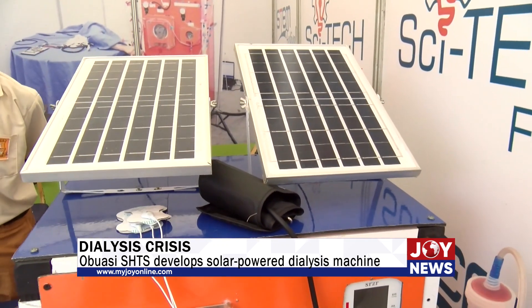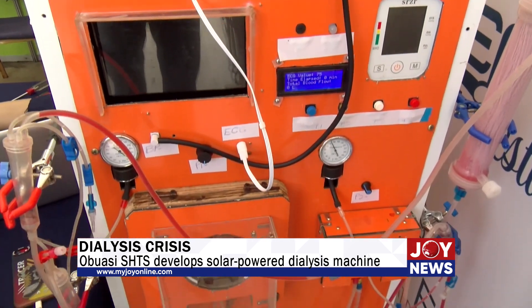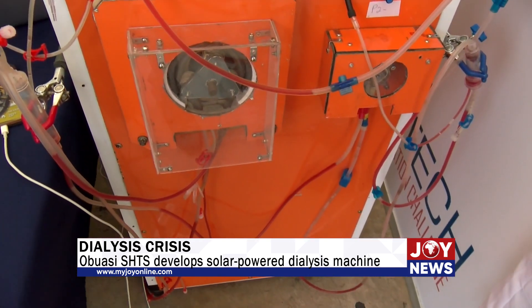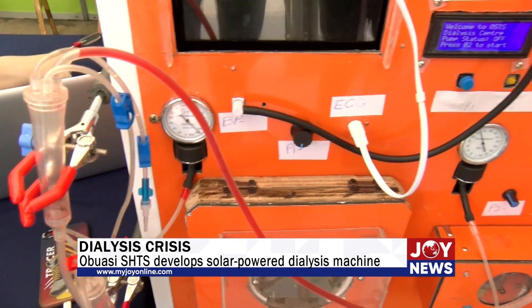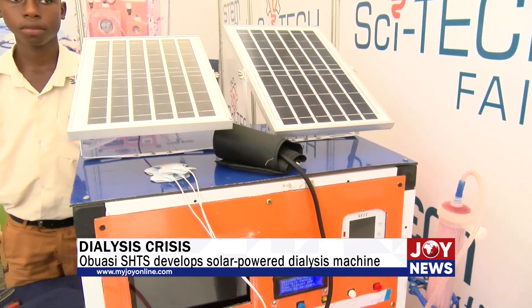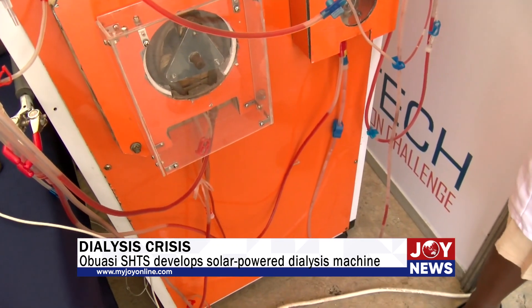What is it about and how did it come about? When a person's kidney gets injured or diseased from an accident or maybe from a disease like nephritis, and the kidney can no longer perform its function like it's supposed to — which is filtering of toxic substances from the body like urea, excess salt, dissolved minerals, and maybe excess water — then the nephrologist will opt for a dialysis treatment to get those substances out of the body. And this is the dialysis treatment.